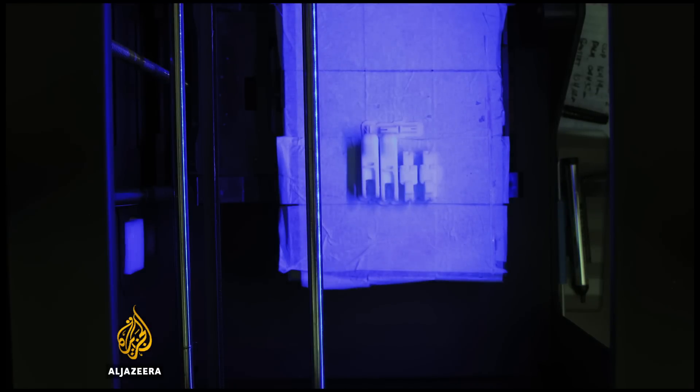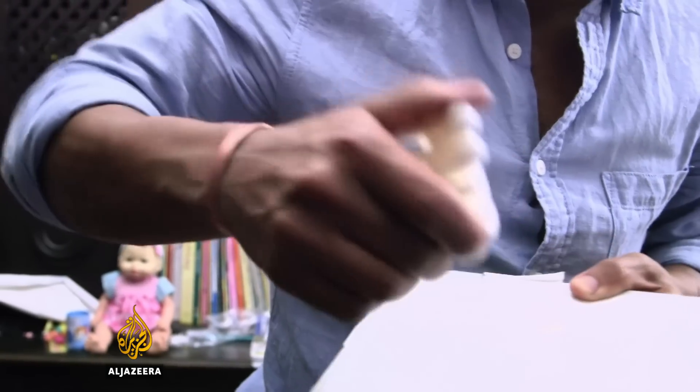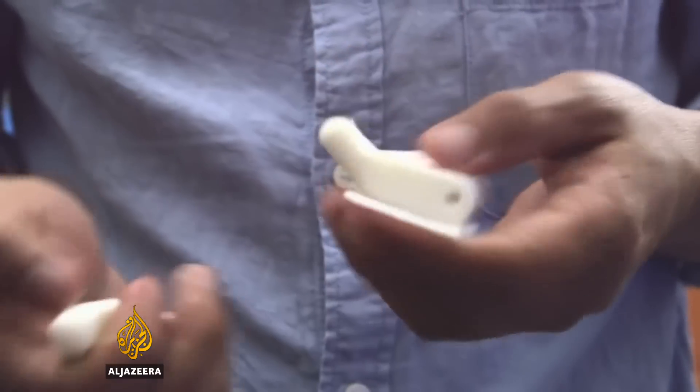It's ready — I can take it. And there it is — bang, and there's a finger!